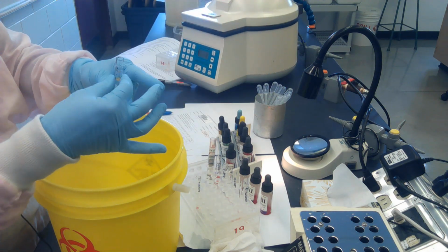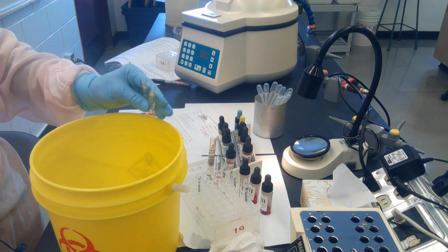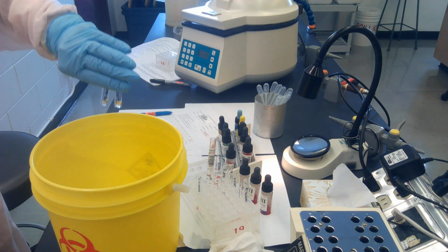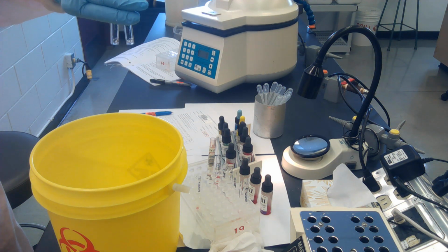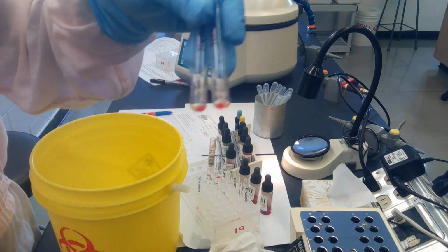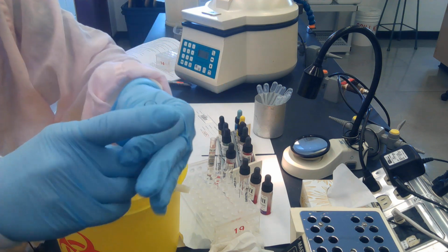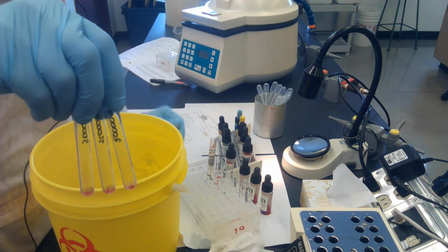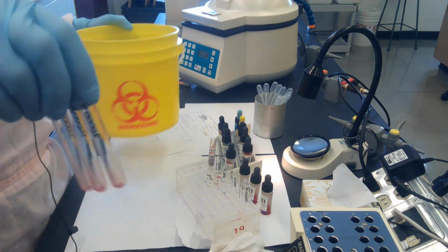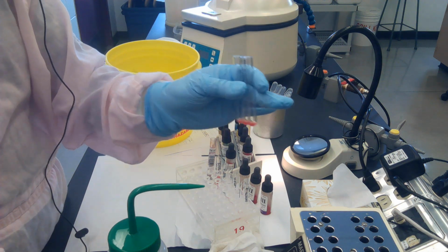I'll do that with 2 tubes now. Okay, so I've got the tops of my tubes separated so that I don't contaminate from one to the other. Forceful dump. Bring the tubes up slowly, dump to get that little bit out, and there's lots of cells left. So not to worry that you're going to lose your cells. Before we wash them the second time, you're going to shake them up because it's really difficult to wash cells properly if they're all in a ball at the bottom of your test tube.